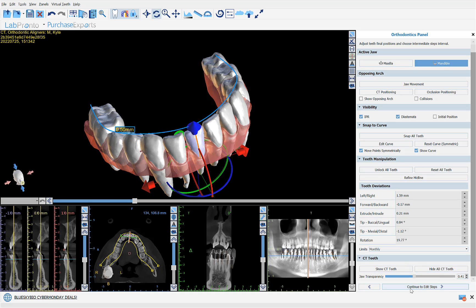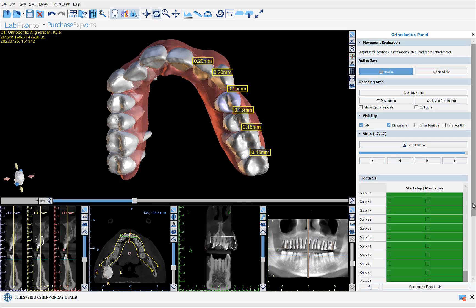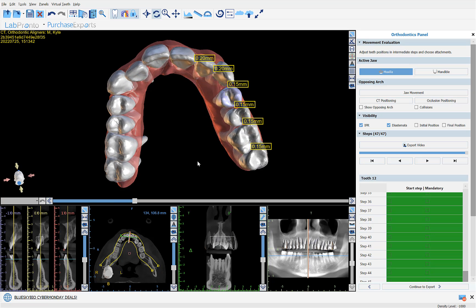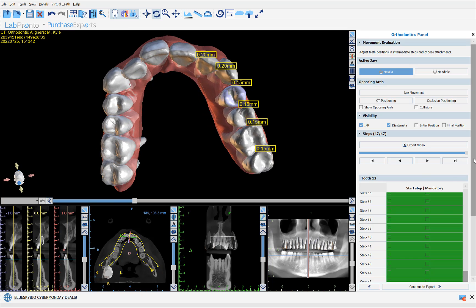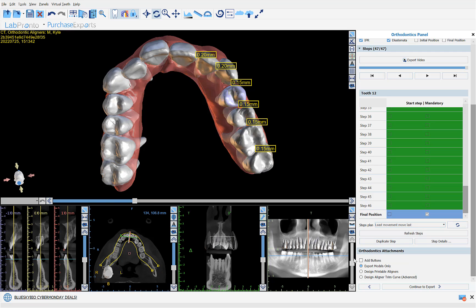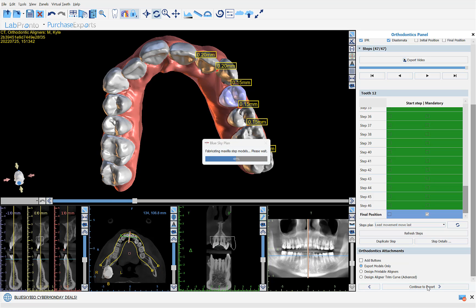Continue to edit steps. At this point, we could use our start step and mandatory column to control the exact movements and sequence of movements of the relevant teeth. Once that is done, we could proceed to choose to add buttons, design printable aligners in the software, and the option to design the aligner trim curve for automatic trimming via mill. Once we have completed these options, we could click continue to export. The software will prepare the relevant models to be exported to an STL file format and they can be saved to our computer. Thank you.